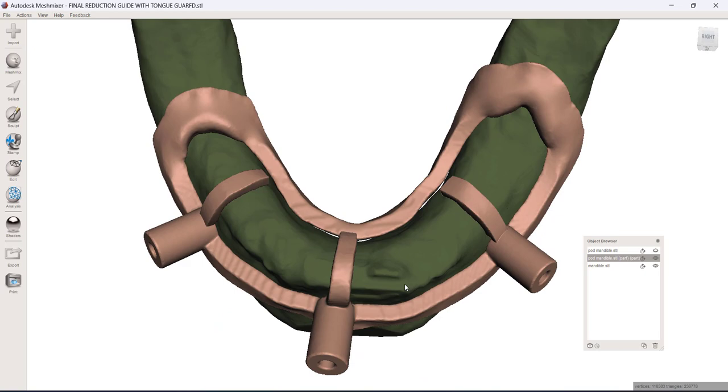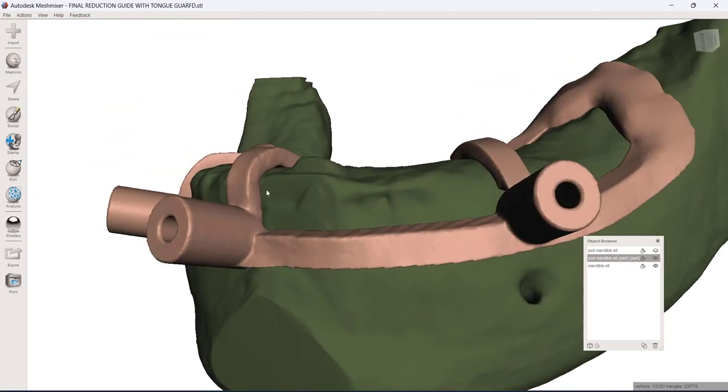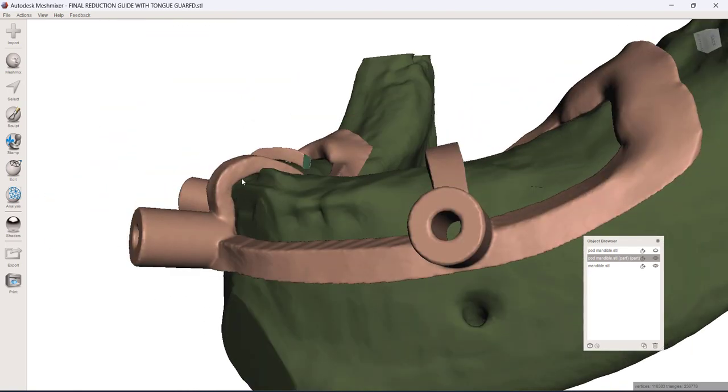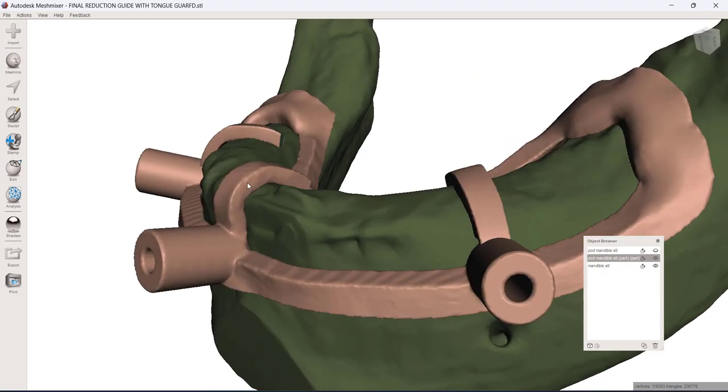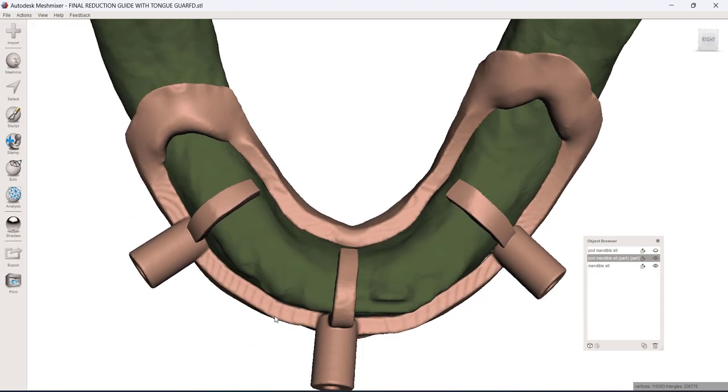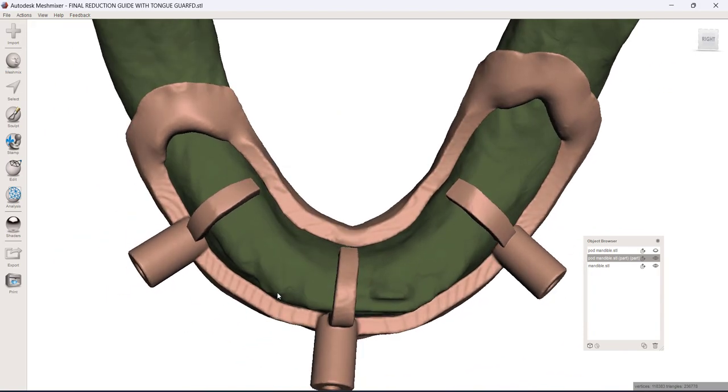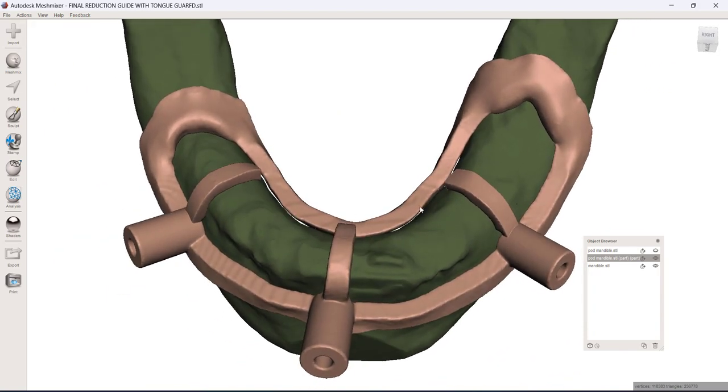And then just to make sense of what you're seeing right here, there's nothing to initially seat this guide. And so I like to build in these little hooks which are going to be occlusal stops. They're going to seat on the bone. And once this is seated, you've got basically five points of contact. So you ought to be able to get a really good definitive seating position.